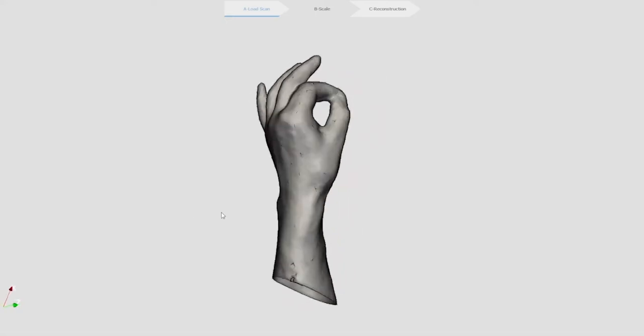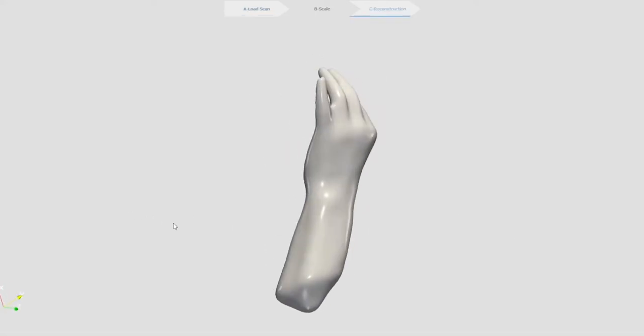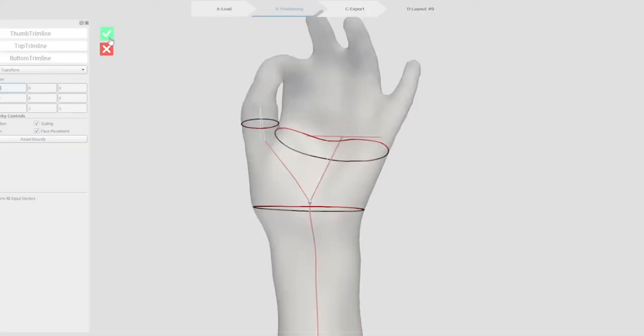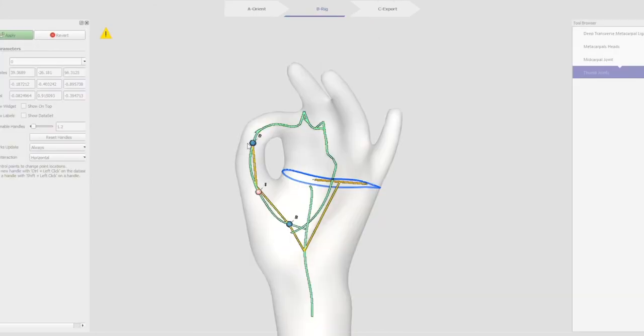Shapeshift 3D is a software that custom fits medical and sports devices to a person's specific morphology, resulting in higher performing wearables.